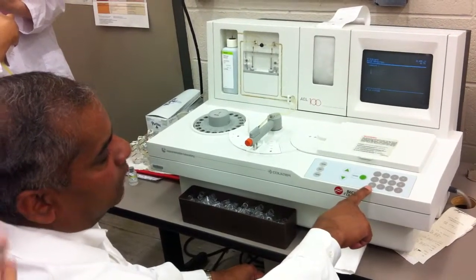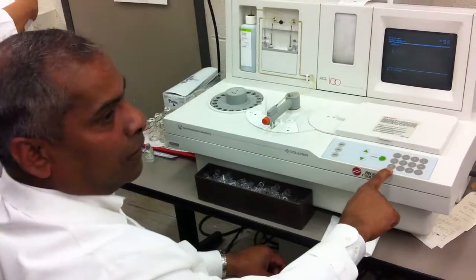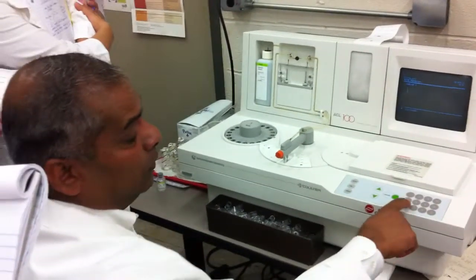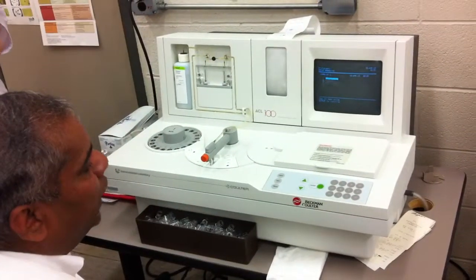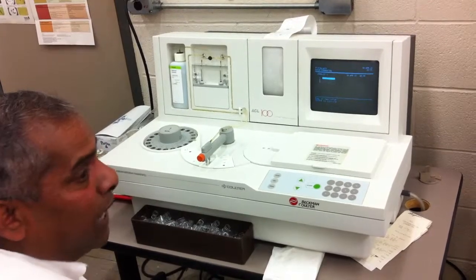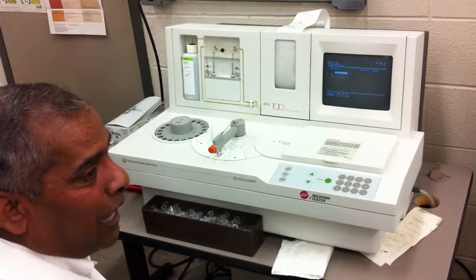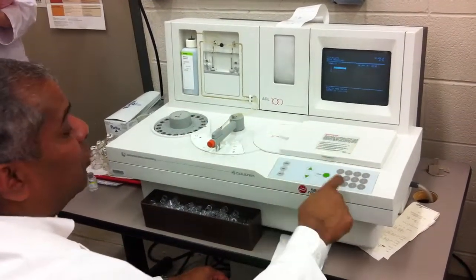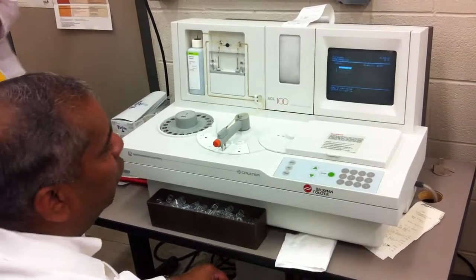So which arrow is that? Up. That's this up. No, it's not the up. It's the side arrow, which is sort of the enter arrow, if you will. See that? So you're going to press this arrow. Then that's going to highlight now. So you're going to put in the patient's ID or the control ID. Okay, control ID for control 1, and that's what the machine will recognize: 1, 1, 1, 1. 4 ones. Then you press enter.